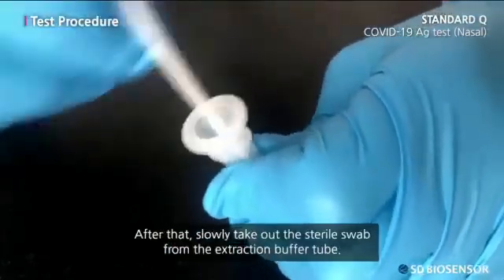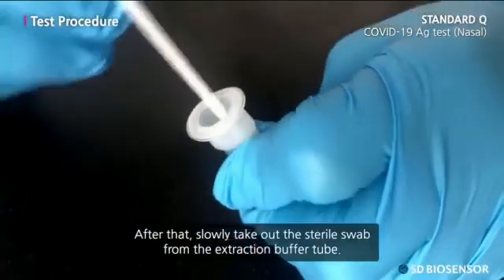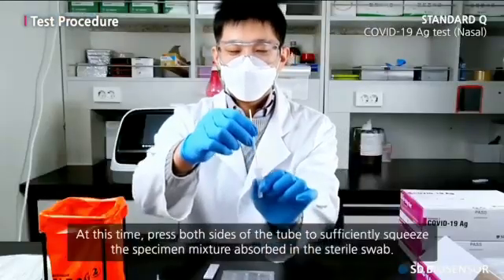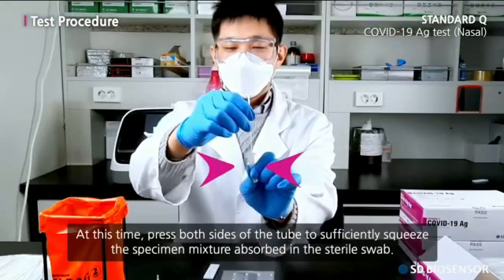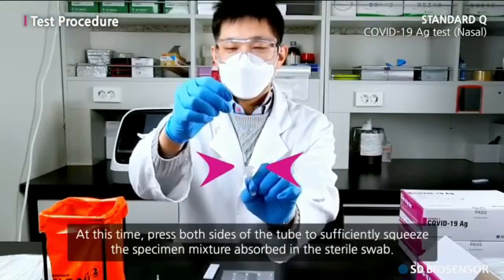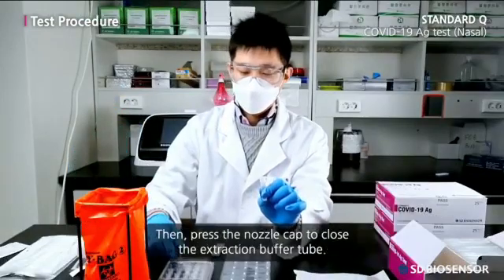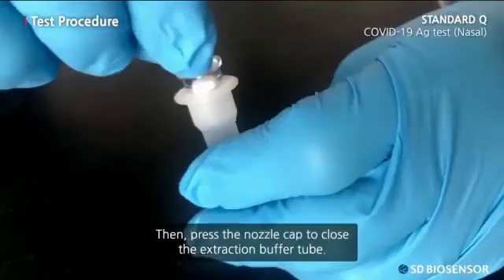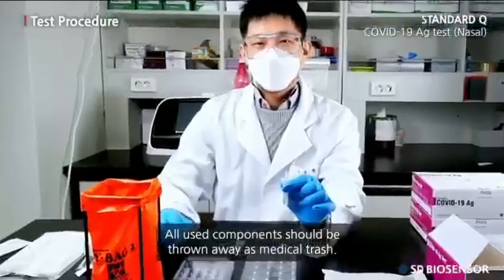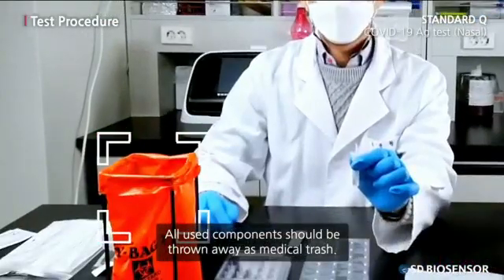After that, slowly take out the sterile swab from the extraction buffer tube. Press both sides of the tube to sufficiently squeeze the specimen mixture absorbed in the sterile swab. Then press the nozzle cap to close the extraction buffer tube. All used components should be thrown away as medical trash.